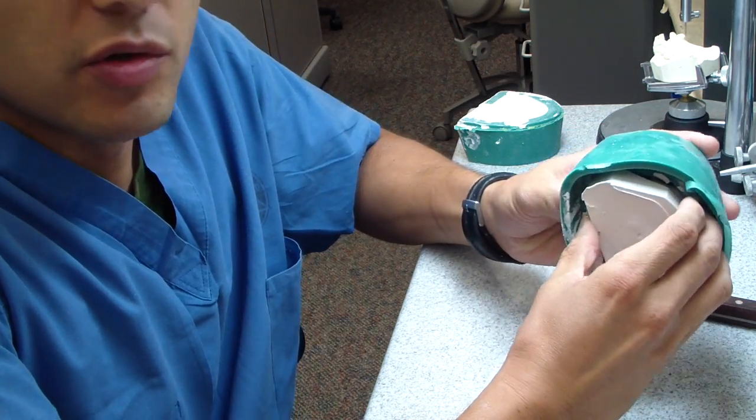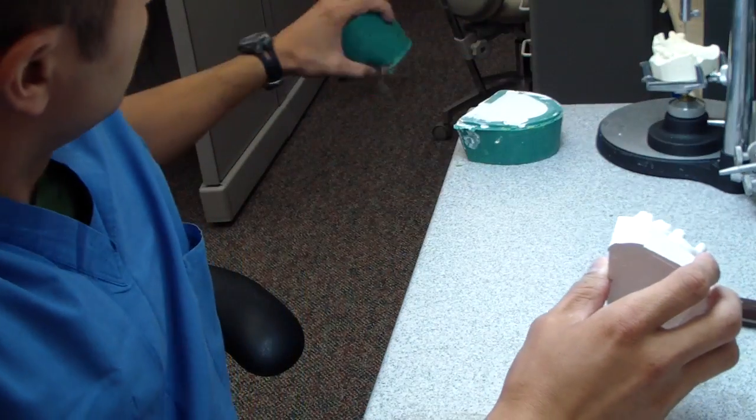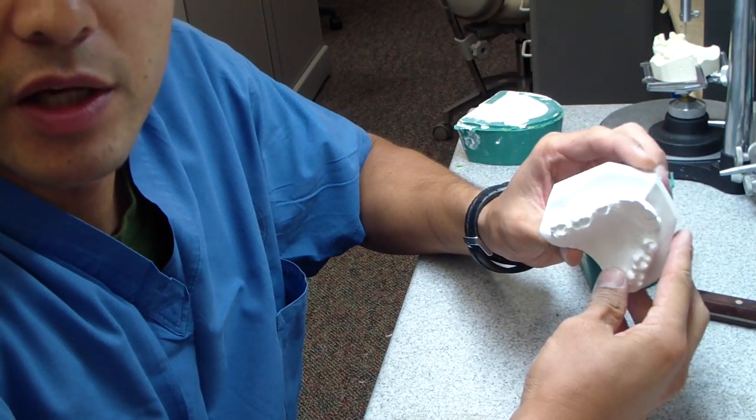So in this case, I poured up these casts in ortho stone, and here you go. So this is the duplicated cast.